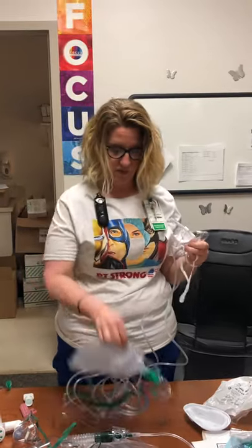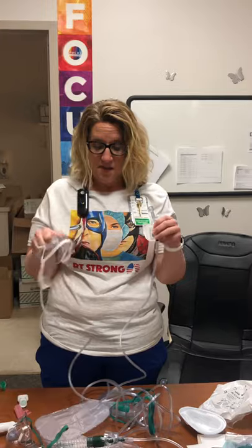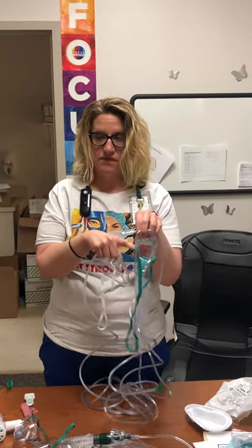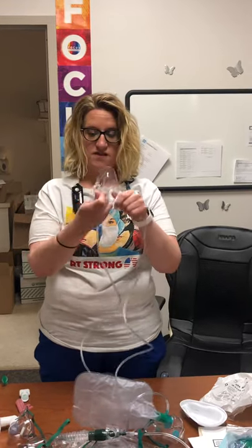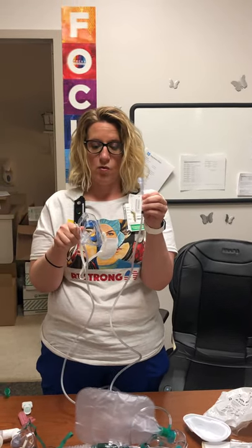The difference between an Oxymask and a non-rebreather is: on the non-rebreather it's always 100% and you can't wean. With the Oxymask, you can wean from 1 liter to 15 liters and back down, or leave them at 1 liter — it doesn't matter. The reason you can't do that with the non-rebreather is it has a reservoir bag and it builds up CO2 inside the mask. The Oxymask has five big holes in it so patients cannot rebreathe CO2 — there's no way for CO2 to build up, which is why it can run all the way down to 1 liter.